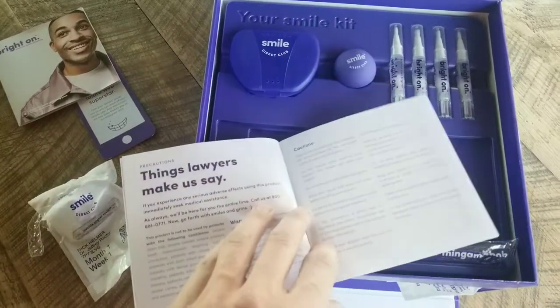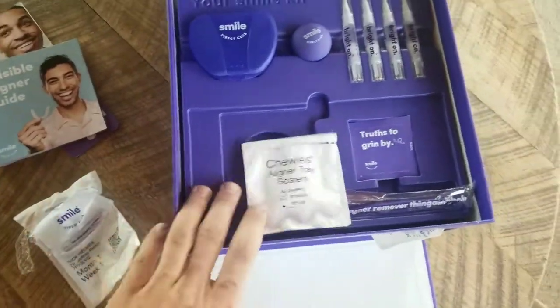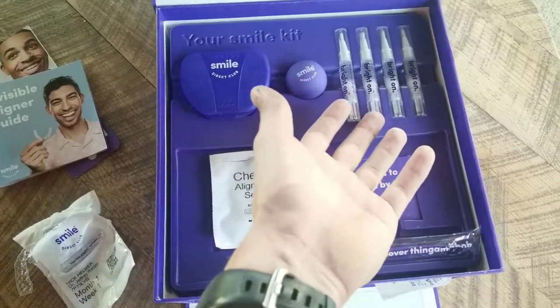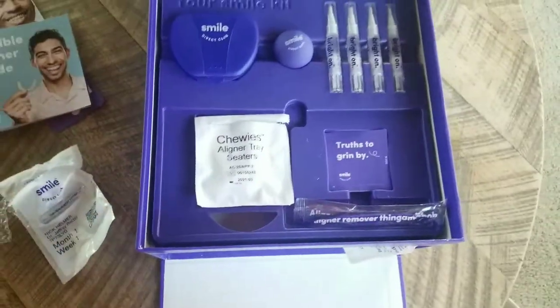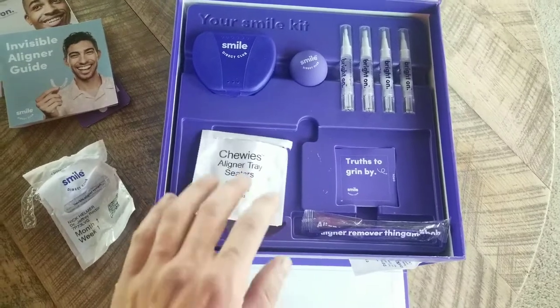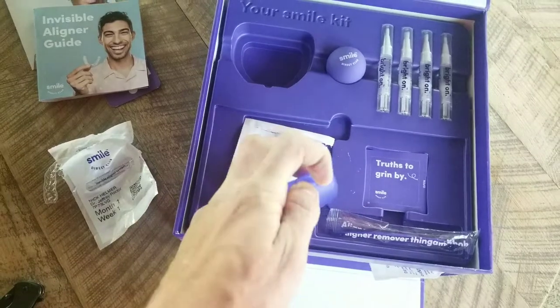Retainers are a good idea — all that. I actually did get a set of aligners with it for free, as well as a whitening kit. I'm pretty sure that was a promotional offer, and I got them in here because it just looks too cohesive. So starting off, you get your case — let's see if I can get it open again.